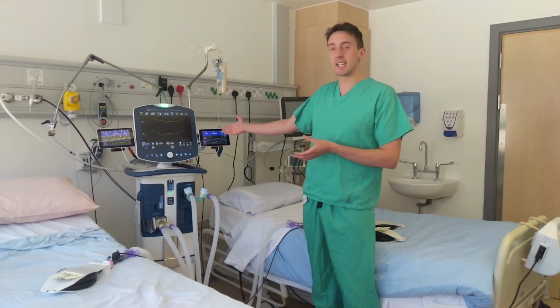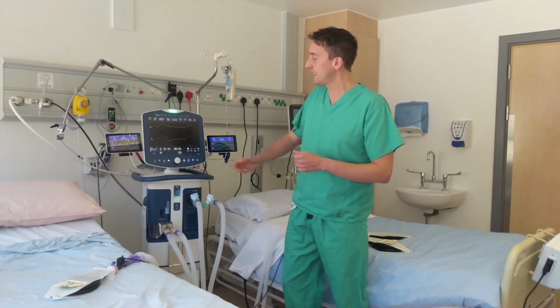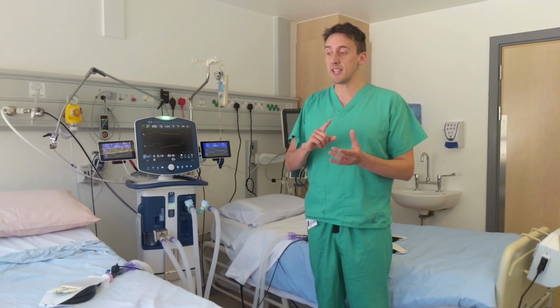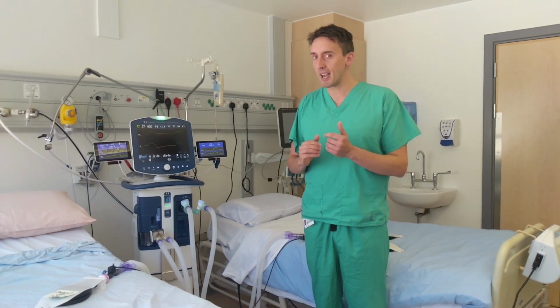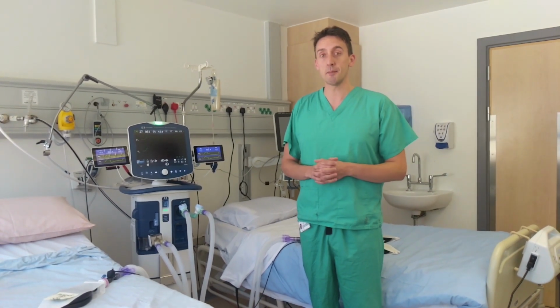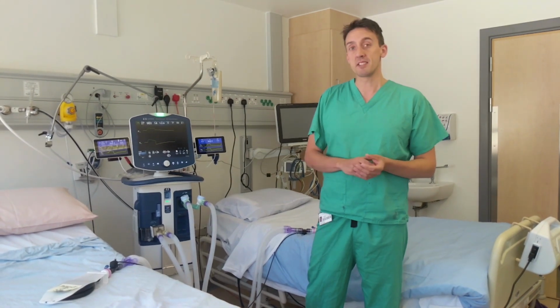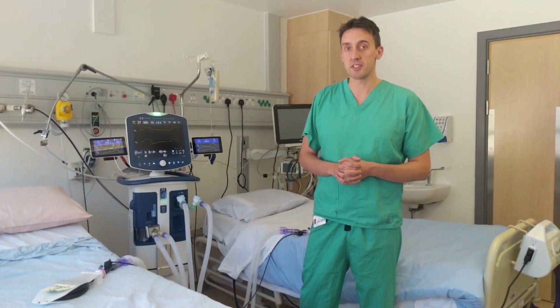This patient is still getting around 600 mils per breath. This patient is getting around 320 mils per breath. Greater details about the protocols that we would recommend that you follow, the way in which we imagine this working in the real world, are available on the website that accompanies this video. That concludes this demonstration.